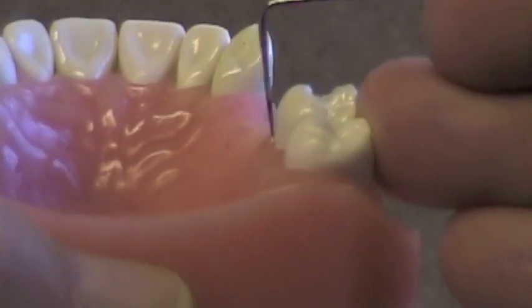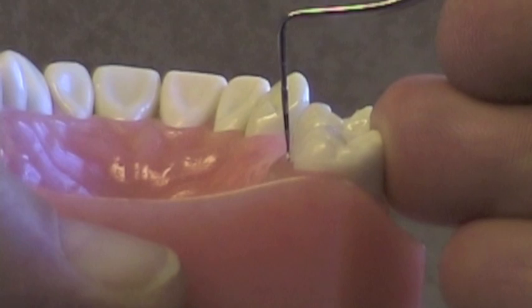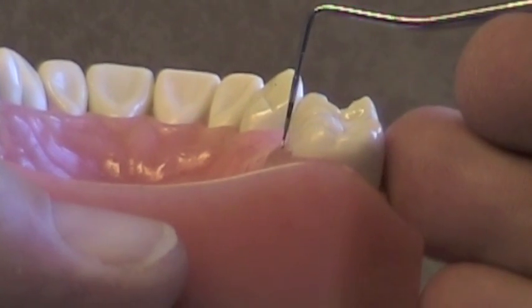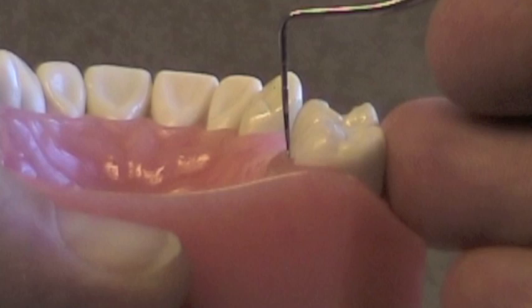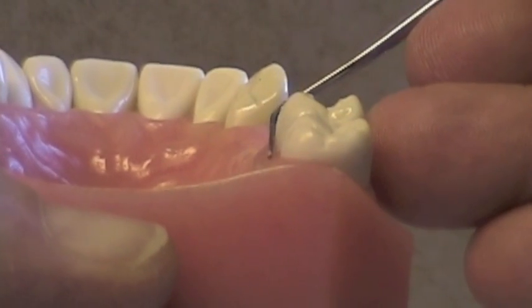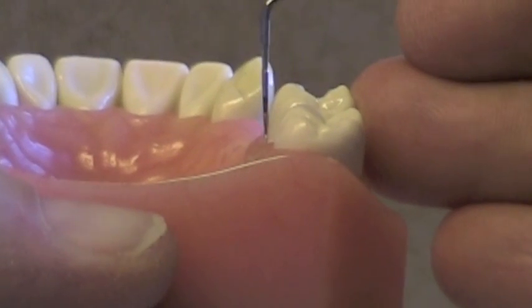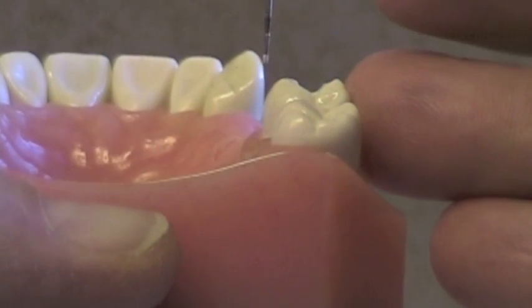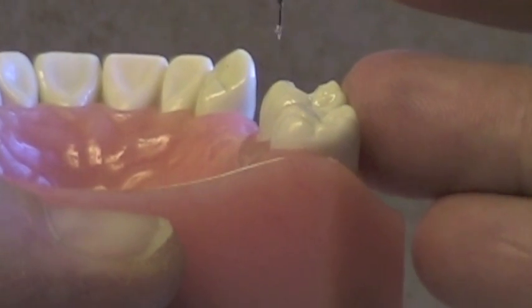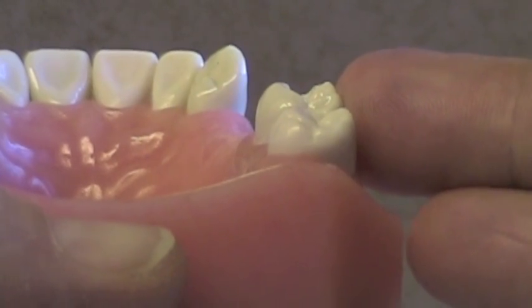There are also cases where the lingual surface, particularly of the maxillary molars, converges or diverges toward the occlusal so that the undercut is right at the free gingival margin. In these cases, we can place a rigid or bracing arm anywhere on that lingual surface and it won't be in an undercut. We don't need to prepare a guide plane because the height of contour is already low, and the rigid bracing arm will still be above that height of contour and won't need to flex into an undercut.